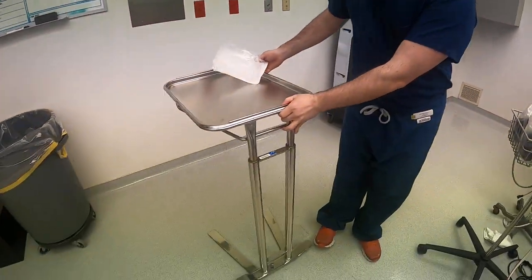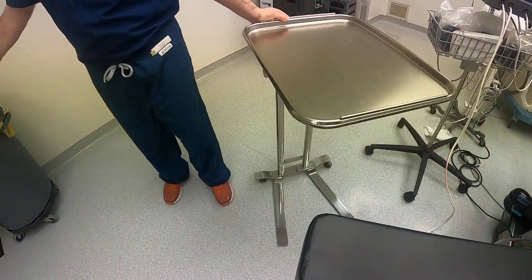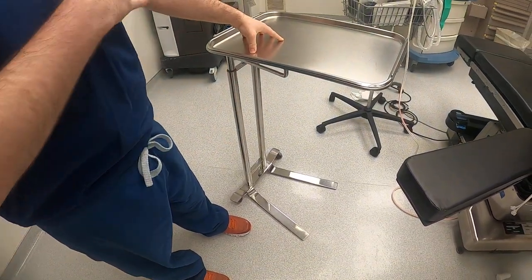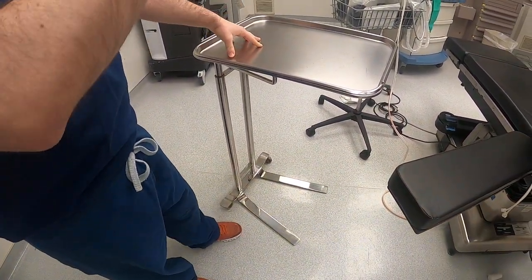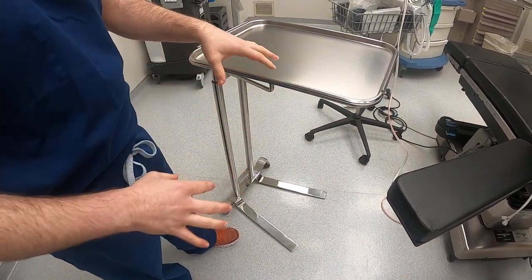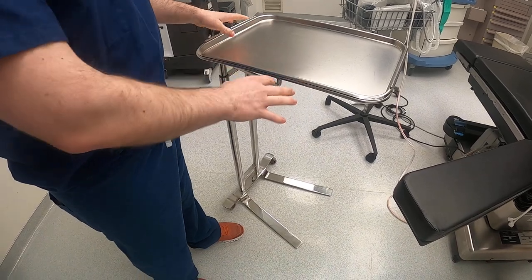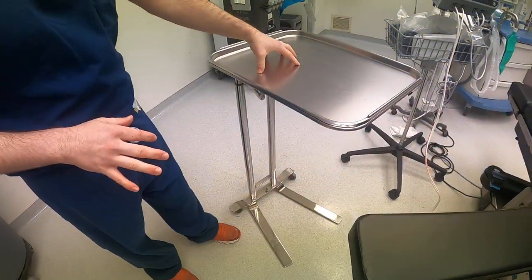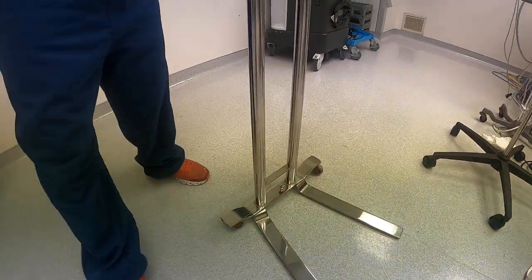Lastly, if you're lucky enough to be scrubbed into a case, many doctors use a mayo stand — a stand positioned around the midsection or belly of the patient so that instruments are readily available for doctors, residents, and students during the case. When the table has to go up and down, the mayo stand has to adapt and move up and down as well.